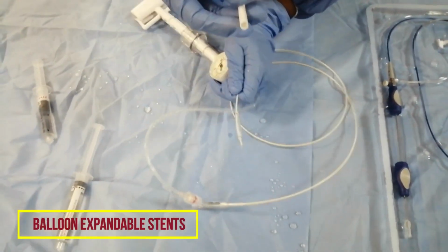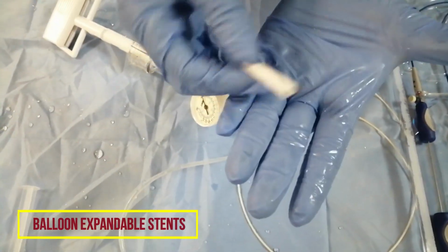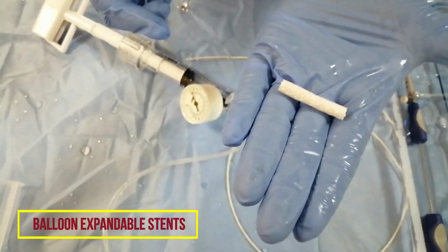This is one type of balloon expandable stent. This is the covered stent. You have uncovered stents also. This is one of the covered stents.